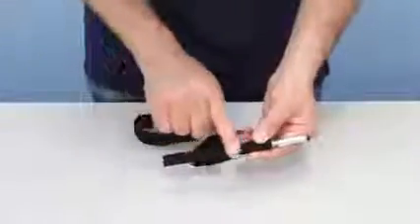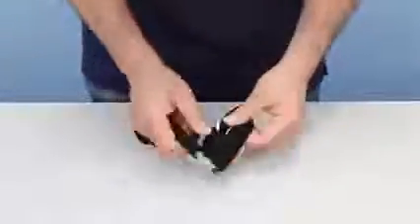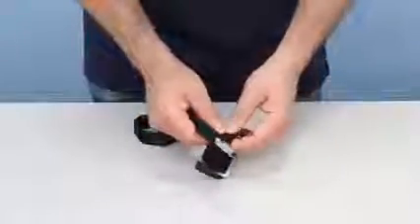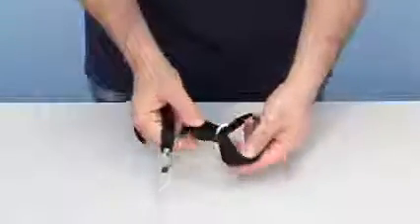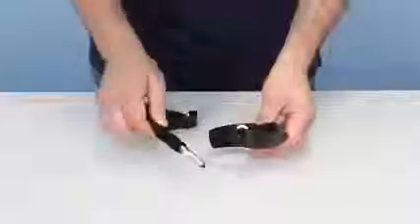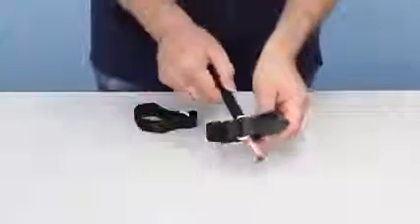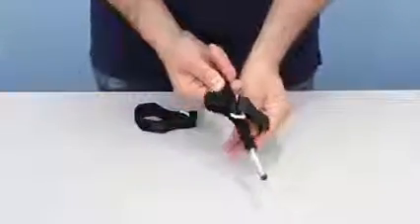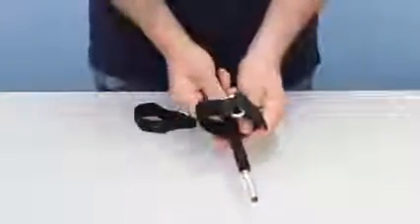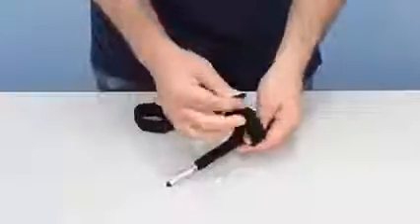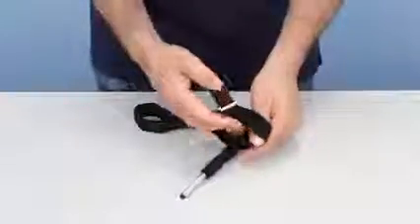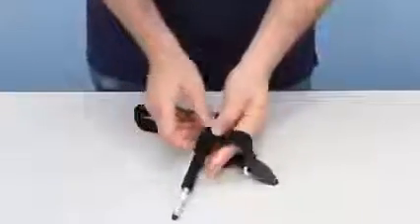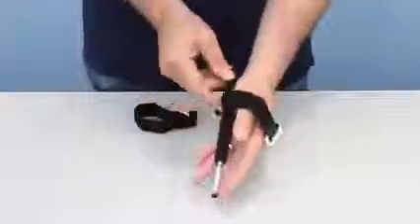That allows you to attach that to these adjustable straps. So what you do is I'm going to show you different adjustments. You can put the stylus on first. I'm going to show this with going over through my wrist here.